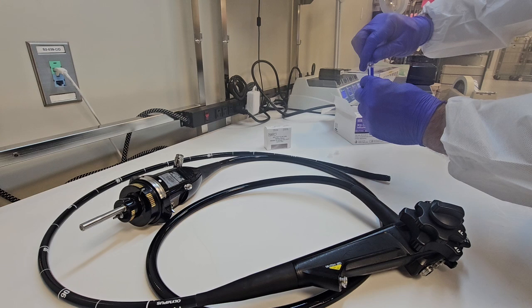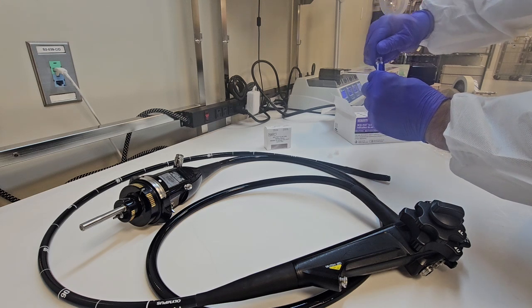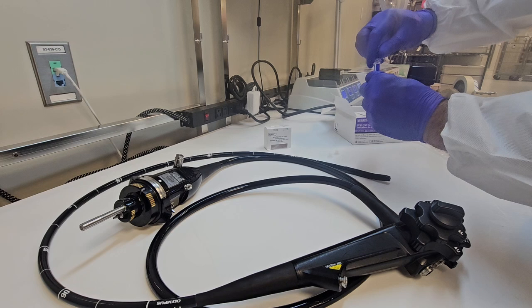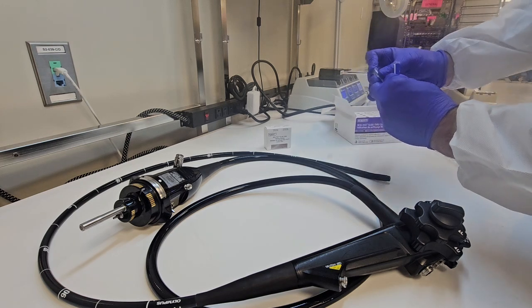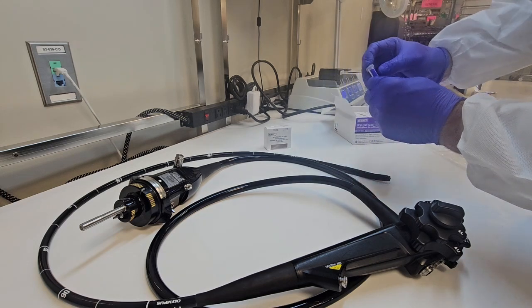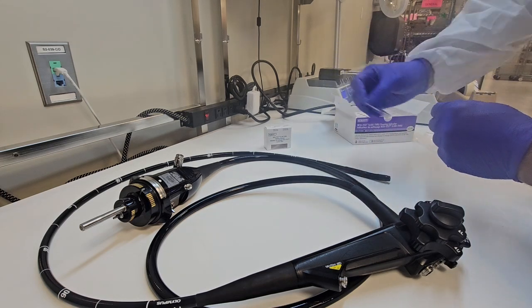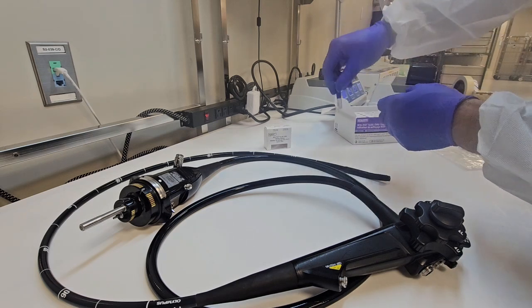Now, my disclaimer: this is my personal scope. It is not a patient-ready scope. It cannot be used on a patient; it's non-functioning. I'm also performing this test in the wrong area. Cleaning verification should be done in the decontamination area in an area designed to do the test.